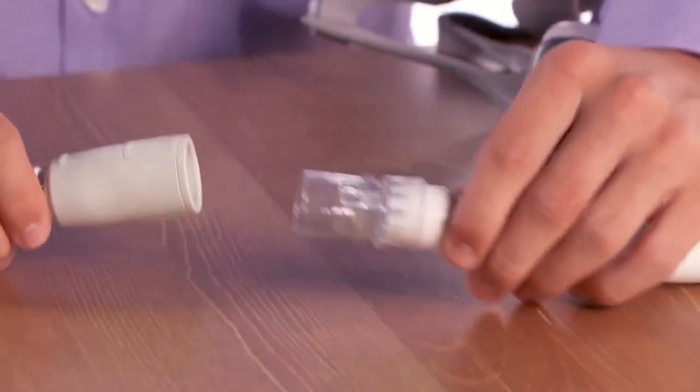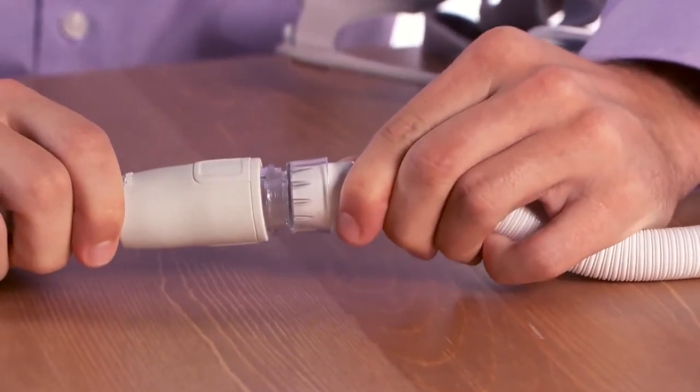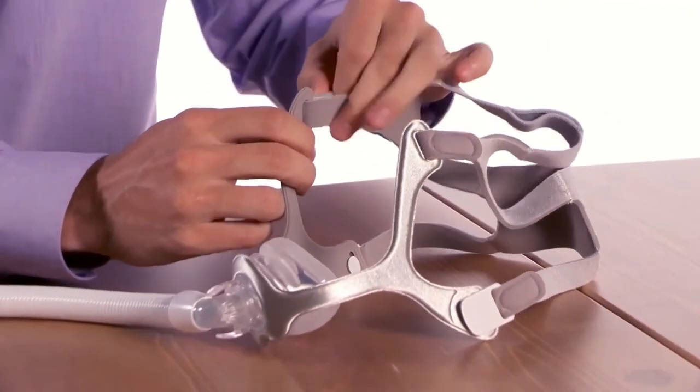Connect the other end of the flexible or heated tube to your mask. Attach headgear to the mask. Be sure to see your mask and headgear instructions for proper fitting and care.